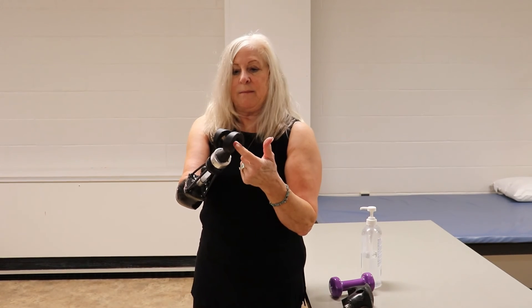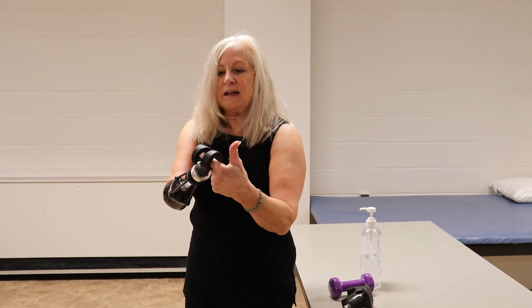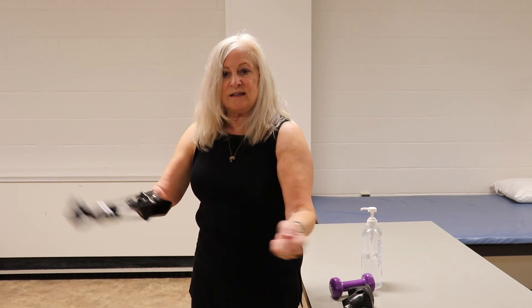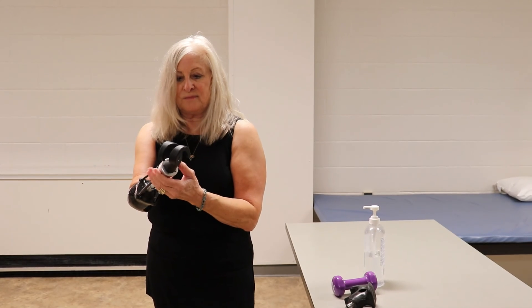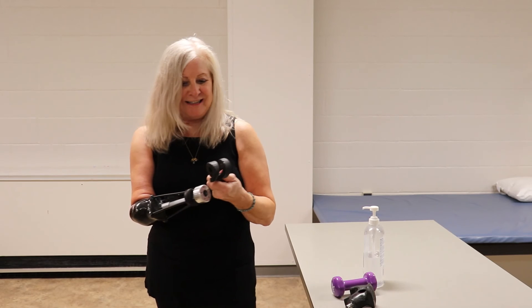The other thing I like about it is that I can use it when I'm watering or even when I'm managing the vacuum cleaner, because I can run the hose or the cord of the vacuum cleaner right through this device to get it out of the way so that I don't trip on it while I'm engaged in these activities. These are my two favorites, the Helix and the Dragon, made by TRS.